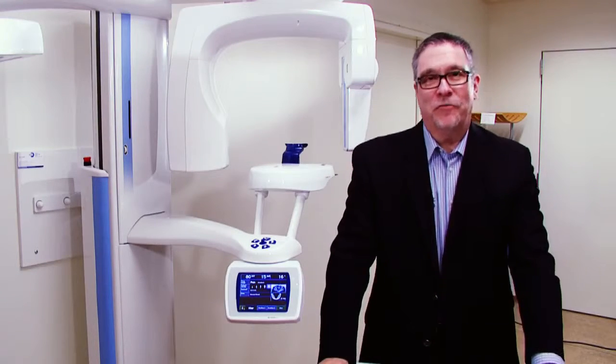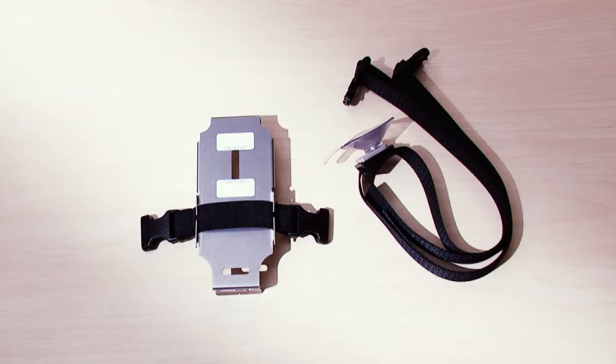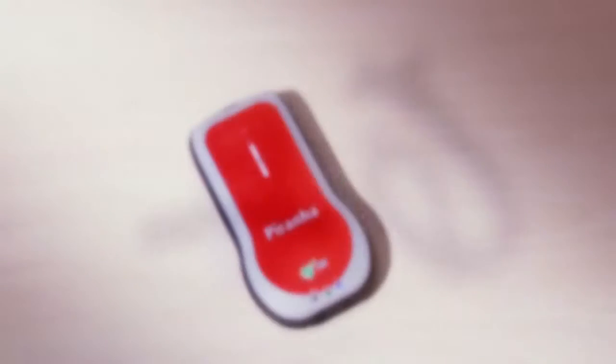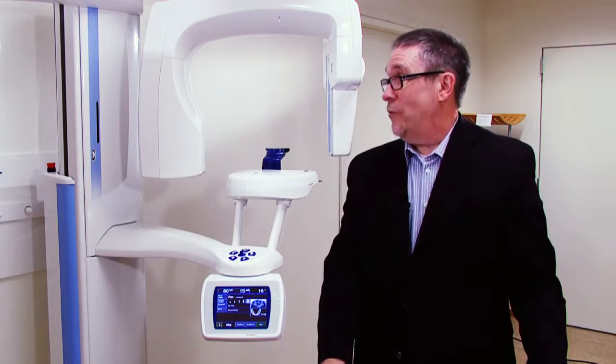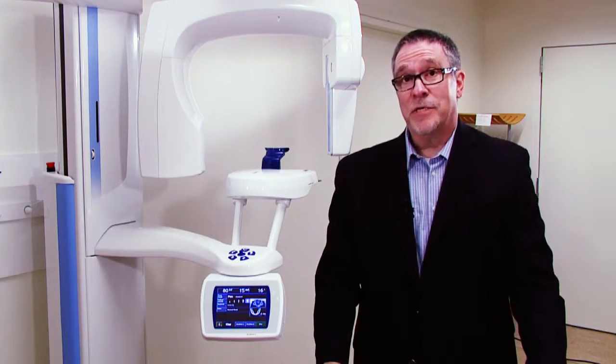Hi, I'm going to demonstrate for you the panoramic holder developed by RTI Electronics for use with the Piranha. This holder has been developed primarily for use with panoramic dental units, which you see right beside me.